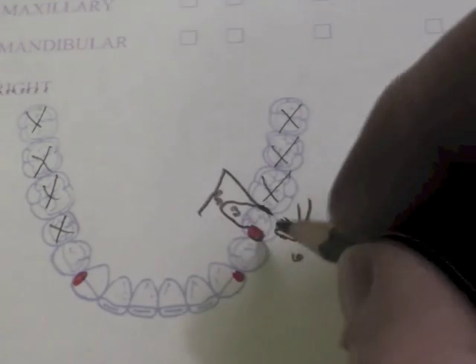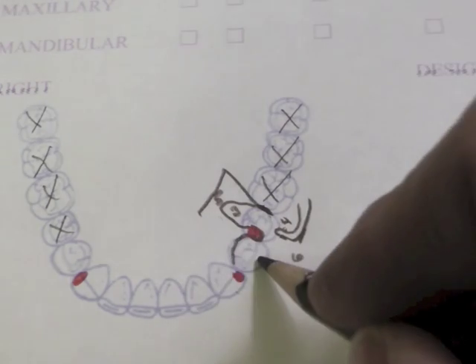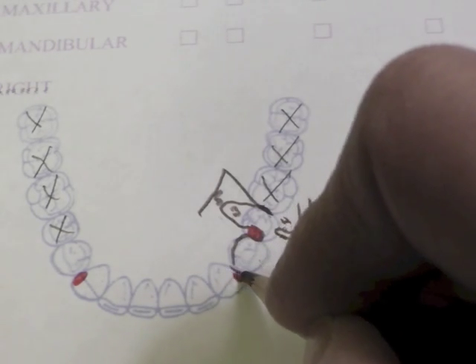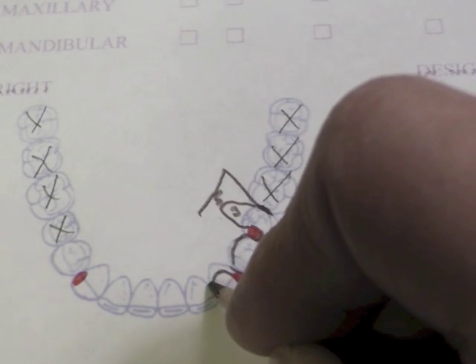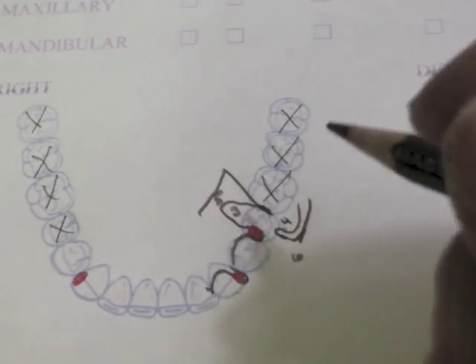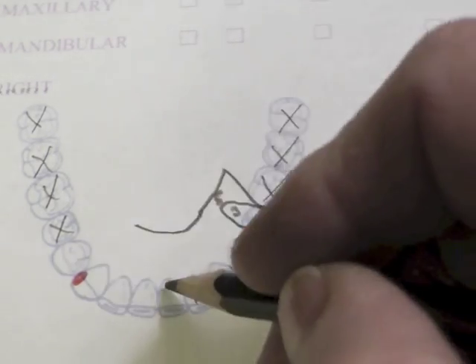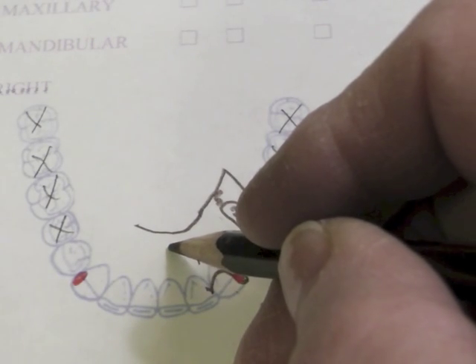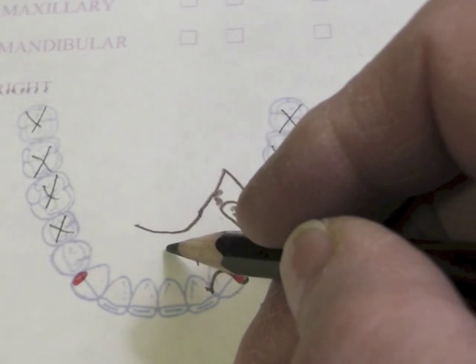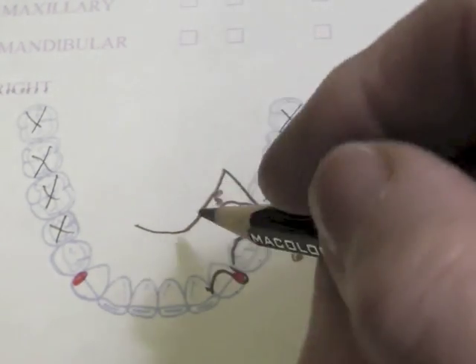This framework comes around like this, and I'm going to plate the lingual of this first premolar. It would come up, go over the incisal edge, come down, and plate. The reason we're plating the tooth is that from the marginal gingiva to the functional floor of the mouth on this cast we only had about six millimeters of length in that area.